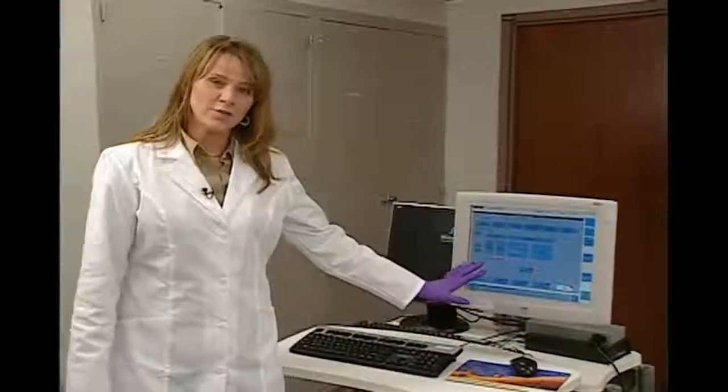So when we go back to the software screen, we'll notice that all the colors are gone, which means this instrument is ready for continuous operation for the next 24 hours.